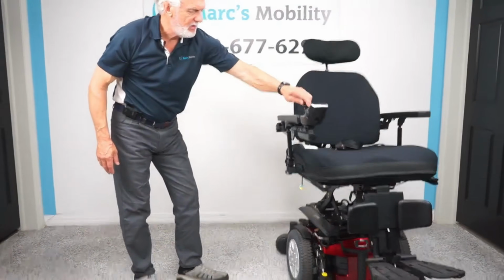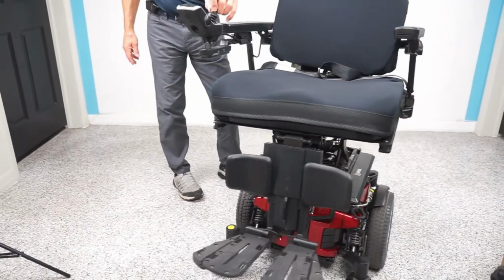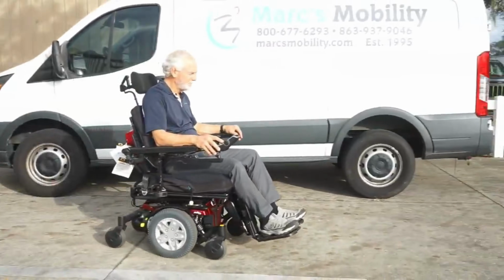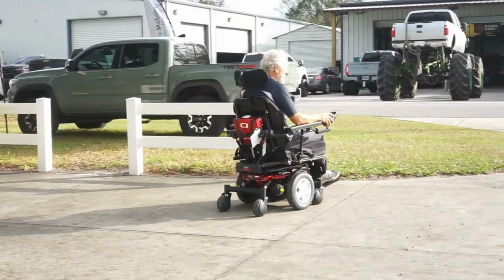You're also going to have a little bit slower speed on the Quantum Edge HD. It is going to be at about 4.5 miles an hour. That is going to be a little bit slower than the 6.25 that is standard on the other units that I mentioned prior. But one advantage of the HD as well is it actually does have a very true exact mid-wheel drive, where the other ones might be offset an inch with the drive tire.